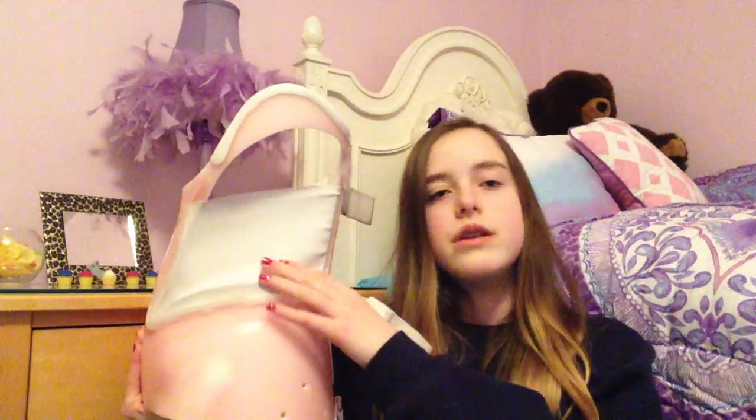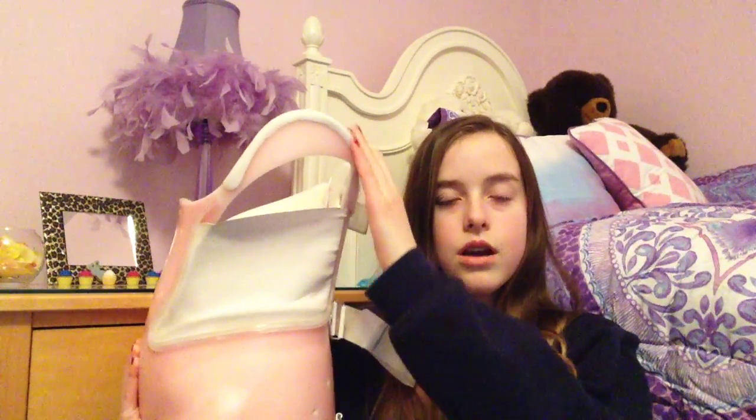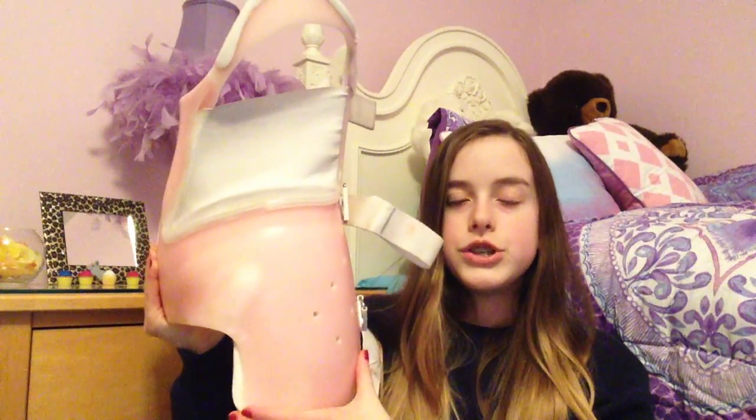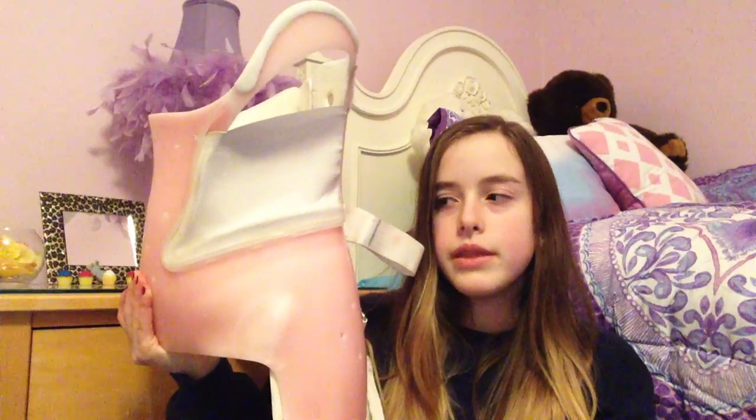In real life, it's like a little bit lighter than that pink. There are tiny little holes screwed through it, which are just air holes. These are on the front and on the sides. And then there's a big hole right here, which is covered in stretchy fabric. And then there is the armpit piece, which has some padding over it, and this goes like way up into my armpit. And then there is this piece, which goes way down and goes like to the top of my thigh.